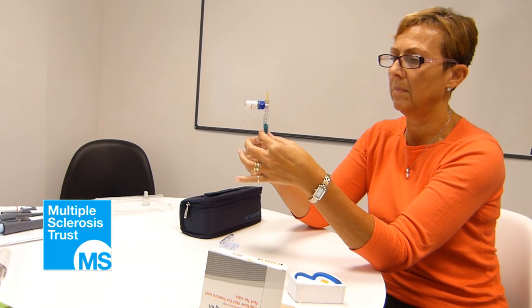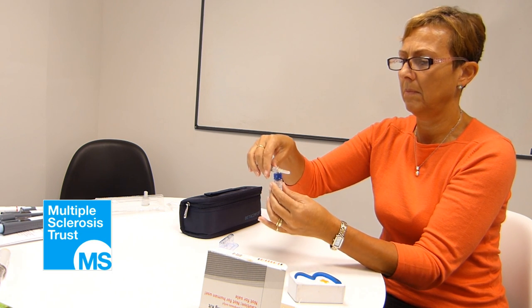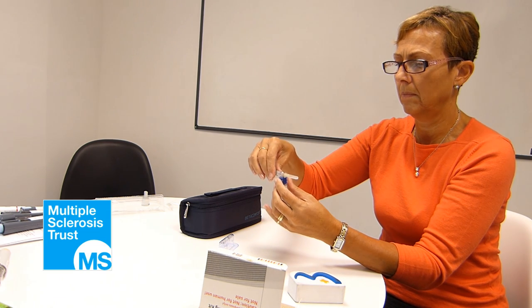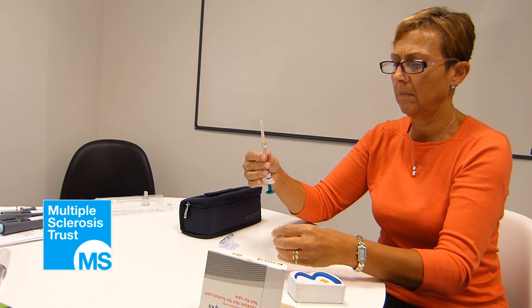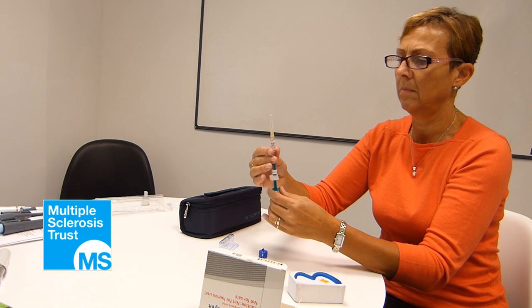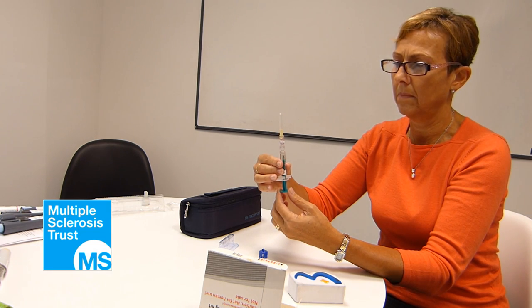The vial and the adapter must be removed from the syringe before the actual injection. Holding the syringe horizontally with the vial underneath, gently twist the blue adapter to remove it. The solution will only flow from the syringe into the needle after the removal of the vial adapter. Your Beta-Pheron is now ready for injection.